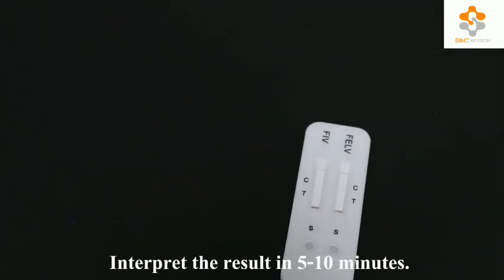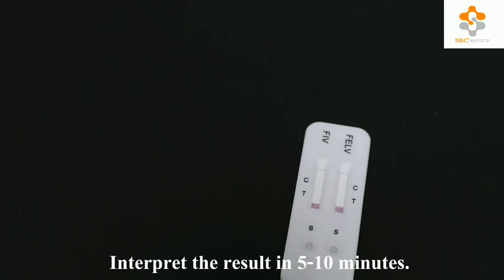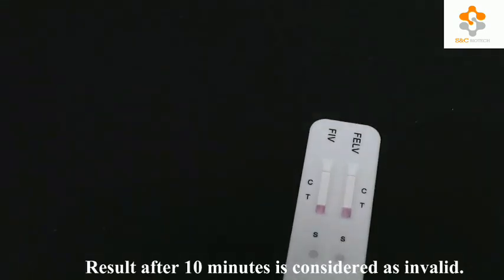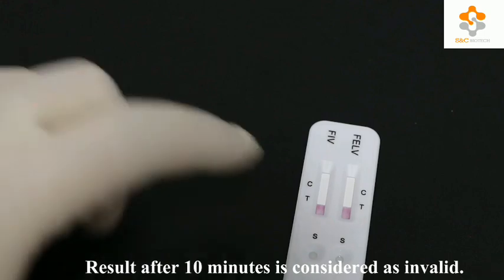Interpret the result in 5 to 10 minutes. Results after 10 minutes are considered invalid.